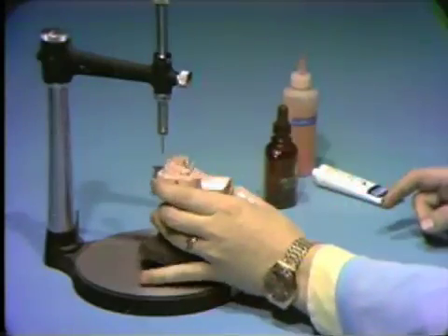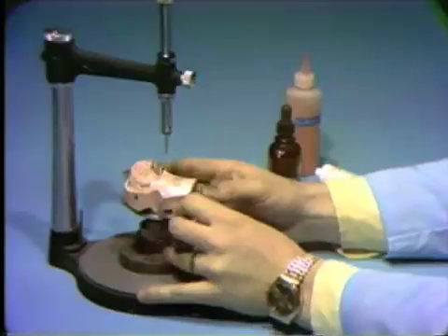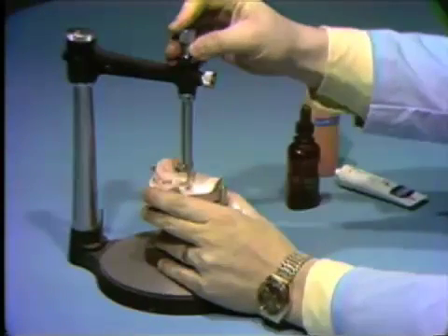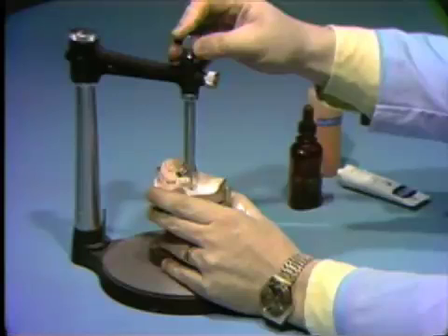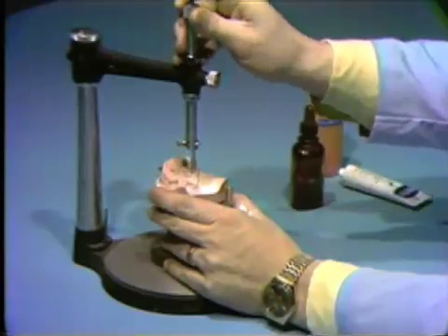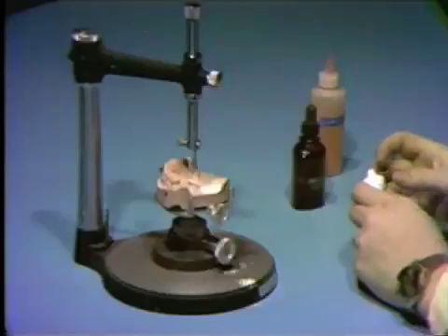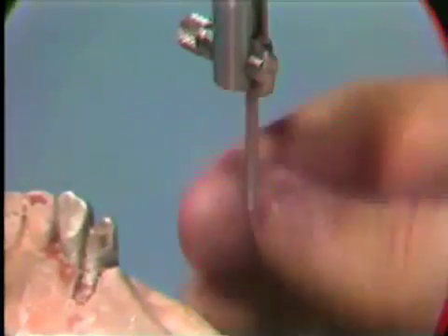An old straight handpiece burr, which has been cut to about 35 millimeters in length, should be inserted in the surveyor spindle holder and locked in place by the locking nut. Keep the end of the rod well above the hole you have drilled in the base of the cast. Lubricate the rod with some Vaseline.